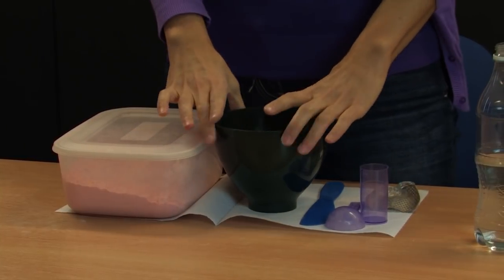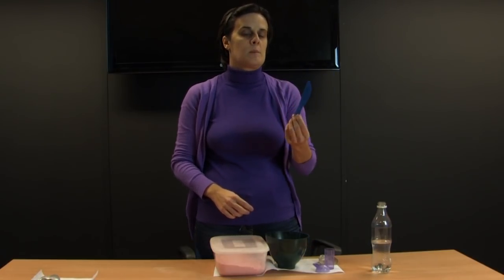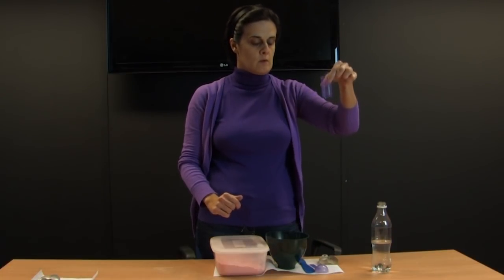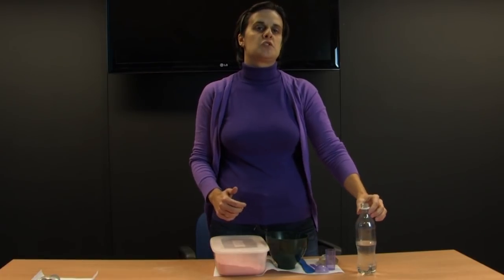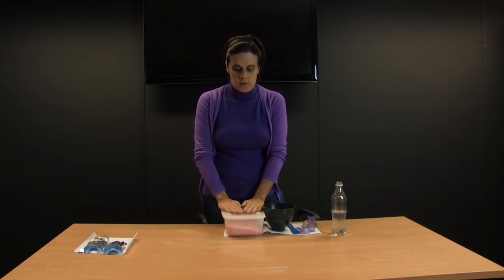In order to mix alginate you will need your alginate powder, a rubber mixing bowl, a mixing spatula — which can be metal or plastic — a scoop for your powder, a measure for the water, and a water source, which in the surgery would usually be tap water. The alginate powder is based on seaweed, and we say that alginate is an irreversible hydrocolloid. This means that once we mix this powder with water it permanently gels and will never go back to its original state — that is why we say it is irreversible.